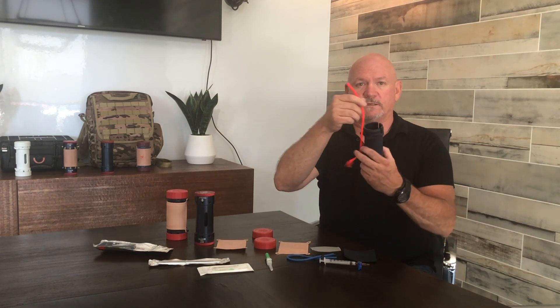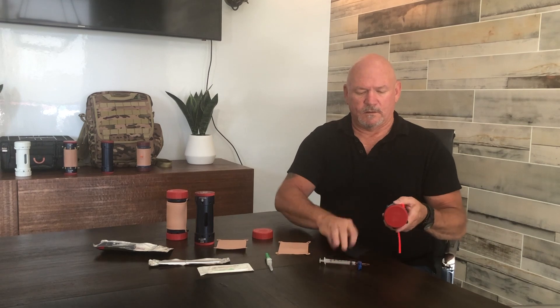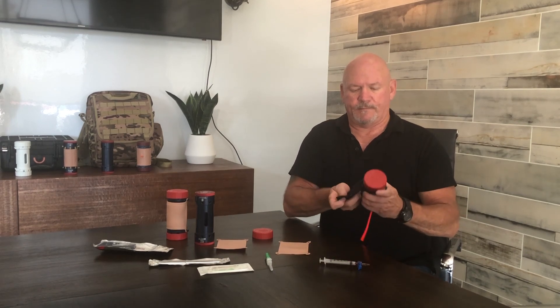This is for your wet stick — this is the red thing. The way you put it together is you slide the red vein over the blue vein — that's your rolling vein and your static vein — and that simply clicks through and locks in place. You're going to take the cap and secure it to this end, which helps keep the vein in place. The flesh pad goes up underneath, and the tissue pad goes over the flesh pad.